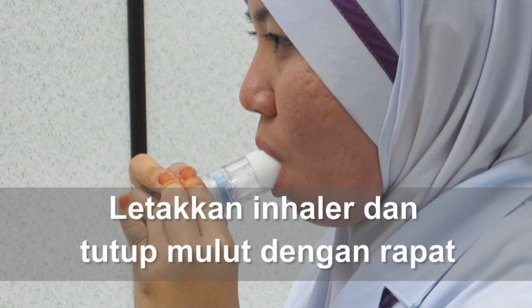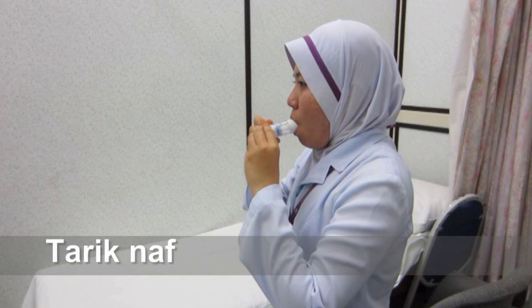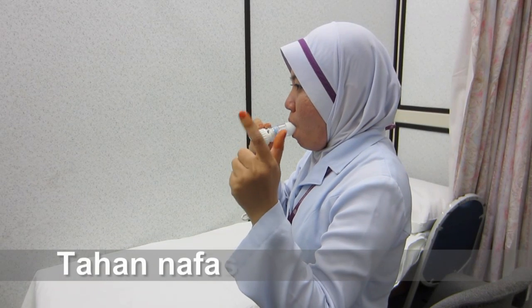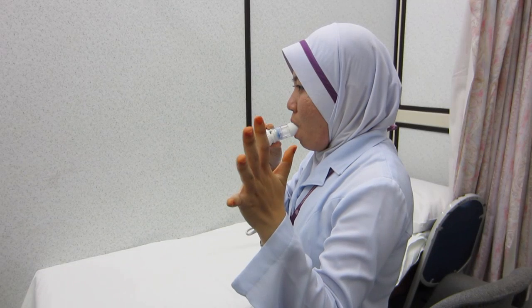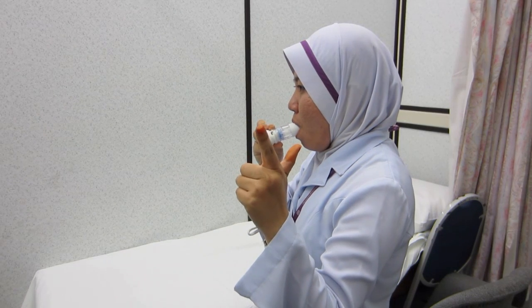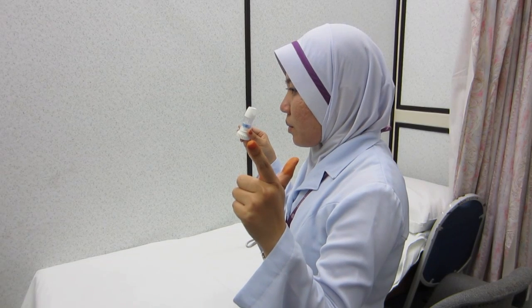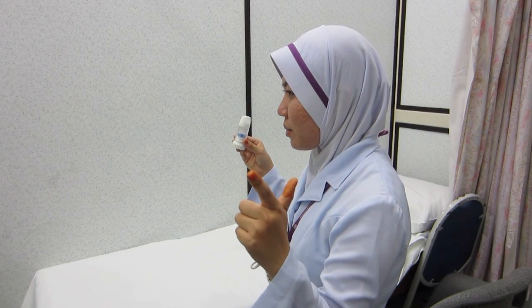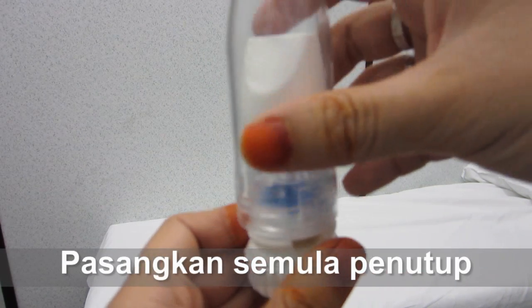Letakkan inhaler pada mulut. Tarik nafas dengan kuat dan laju. Tahan nafas selama lima ke tujuh saat. Hembus keluar nafas dengan perlahan. Pasangkan semula penutup.